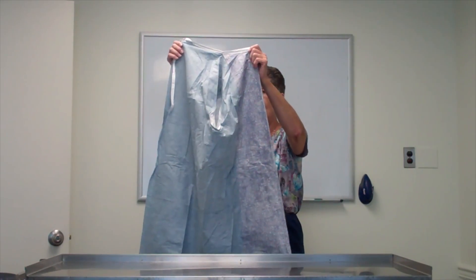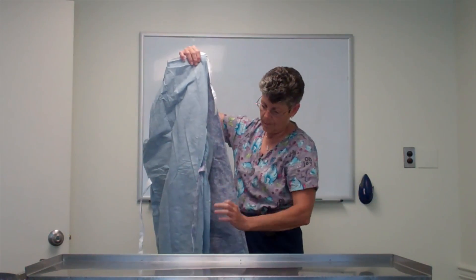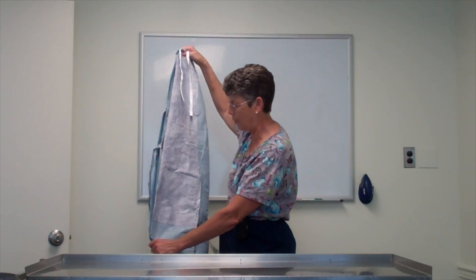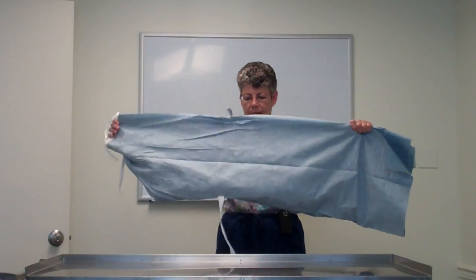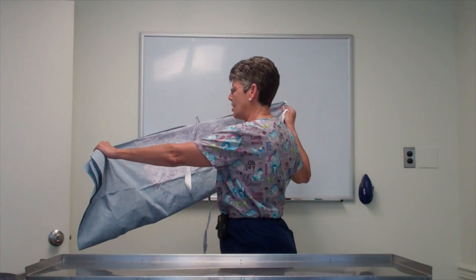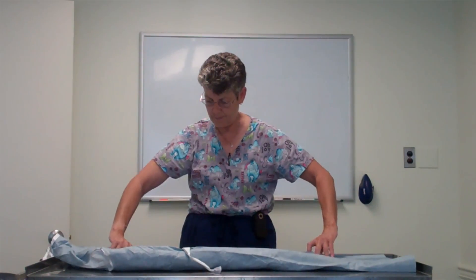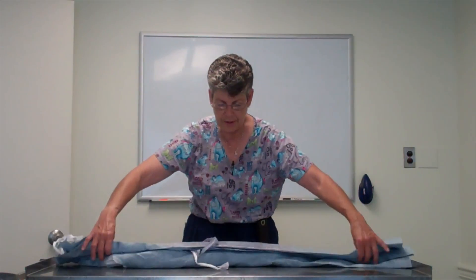You're once again then going to fold the gown lengthwise, going down the outside and looking for the inside middle of the gown where it's folded. And again, you're going to shake it down. That shakes the arms down inside the gown. So the inside middle of the gown is facing you, the fold is on top. You're going to lay it on a long table somewhere and flatten it a little bit. And now what you're going to do is fold it lengthwise once again.